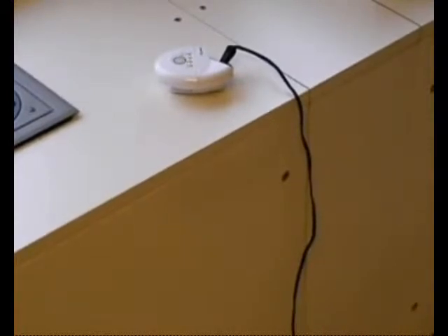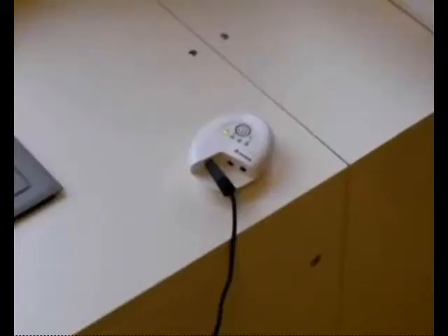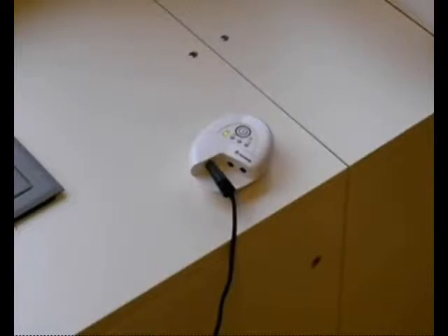Note that the sensor should not be connected at the same time. Plug the charger into a socket outlet and the yellow light blinks while the charging is in progress. When the green light is illuminated, the battery is fully charged. This can take up to four hours.